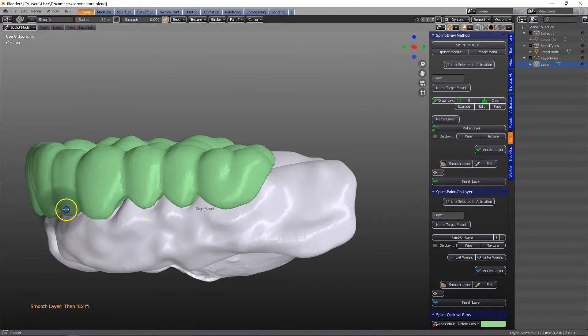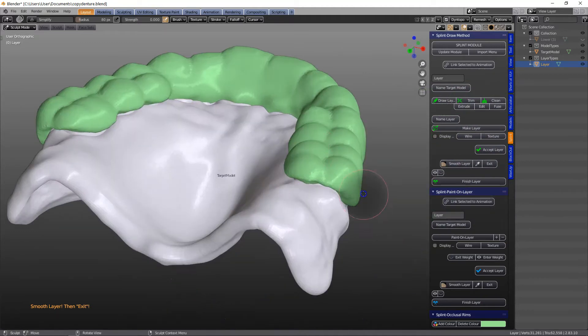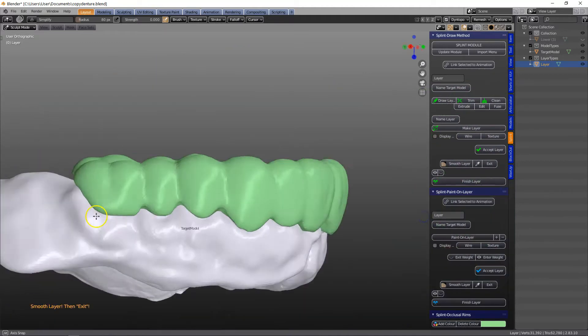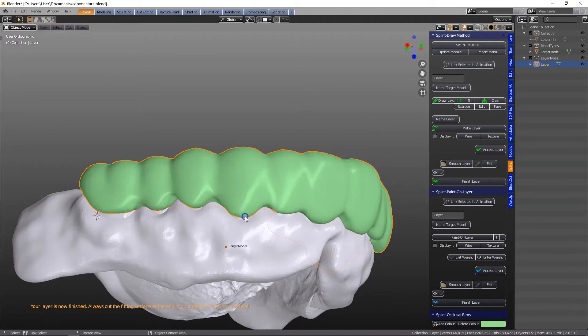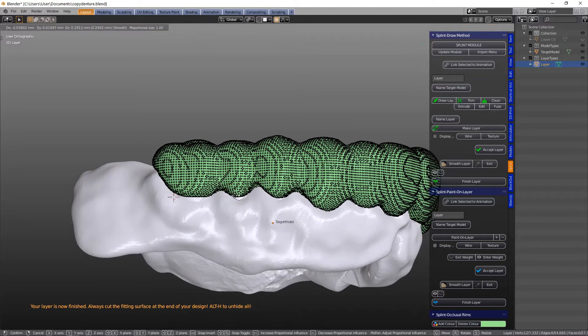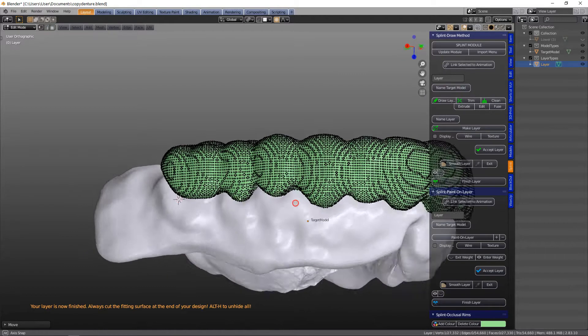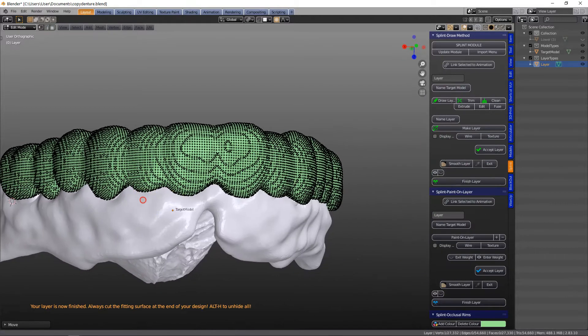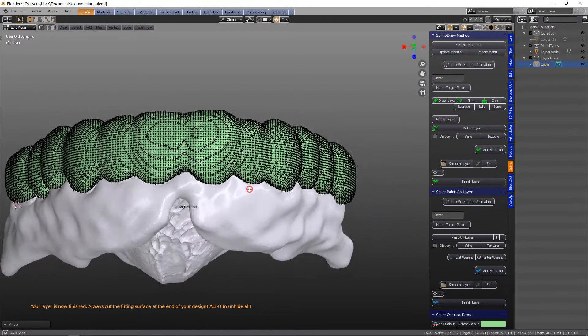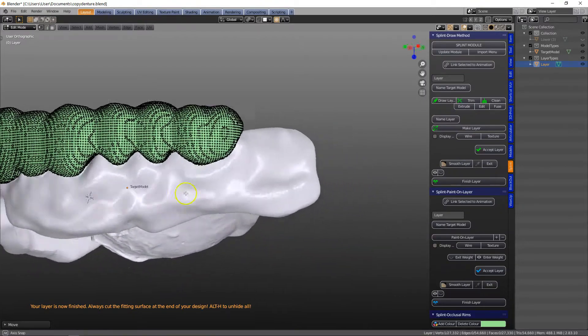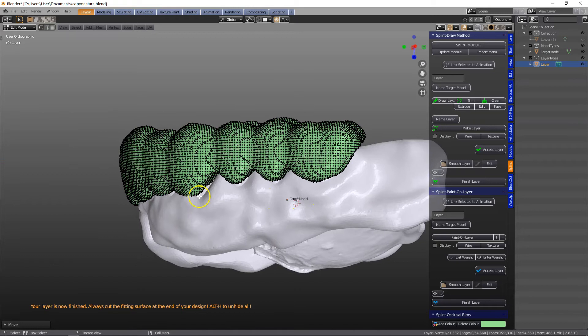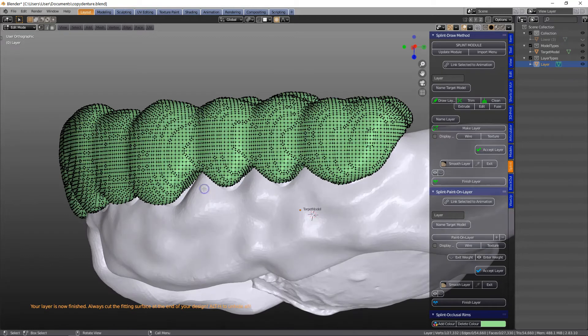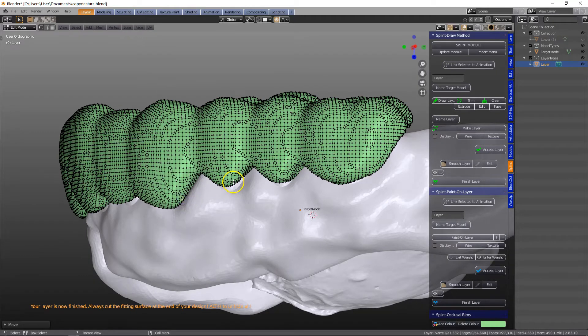But I can see there's a few places which I'd like to overextend a little bit, a little bit short. So make sure the snapping tool is off and the proportional editing tool is on, and then stretch the mesh like a sock, just pull it over where it's a little bit insufficient.